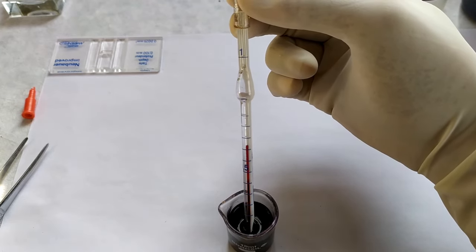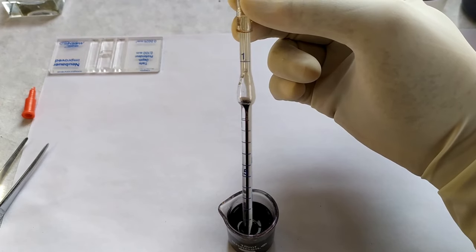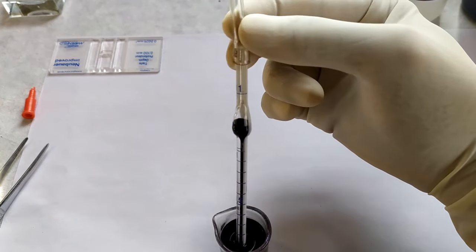Now carefully draw the WBC diluting solution up to the 11 mark on the pipette.